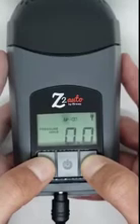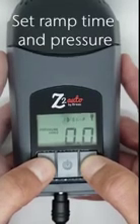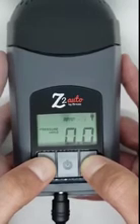The first setting we are going to adjust is the ramp time and start pressure. If you do not have a ramp set in a fixed pressure device or mode, the unit will start at the treatment pressure. In auto mode, the device will start at the low treatment pressure.